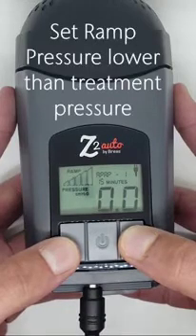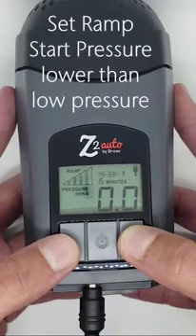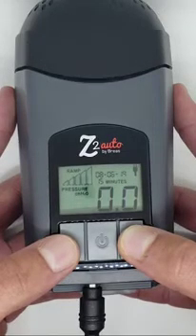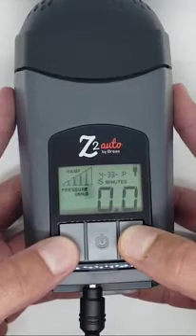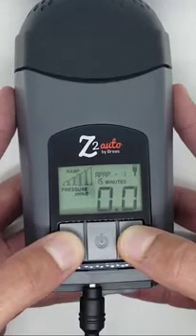For an auto device in auto mode, the ramp start pressure must be set lower than the low treatment pressure. The ramp start pressure must be lower than the set treatment pressure because otherwise you would not have a difference in pressures to ramp to. It is important to note if the start pressure is set higher than the treatment pressure, the device will not function properly. To set the ramp time, press and hold the up arrow until the ramp time appears.